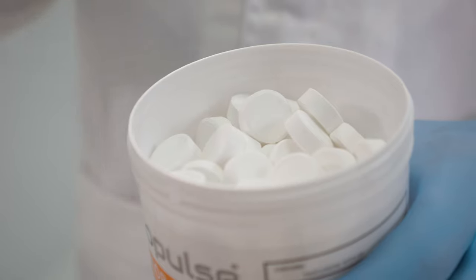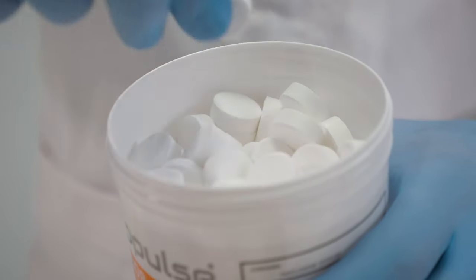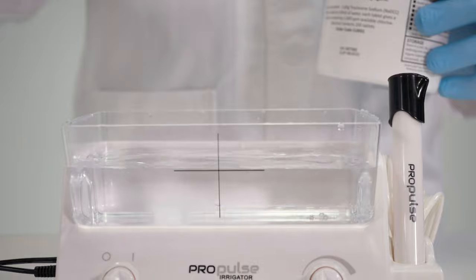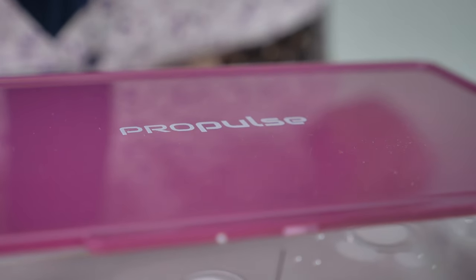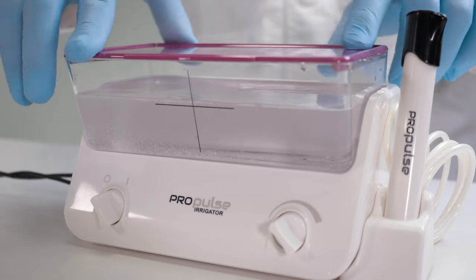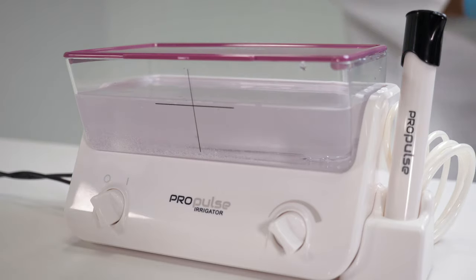First, fill the reservoir with tap water up to the horizontal fill line. One cleaning tablet is then placed into the reservoir. The lid is then refitted and the tablet left to dissolve. This takes approximately three minutes.